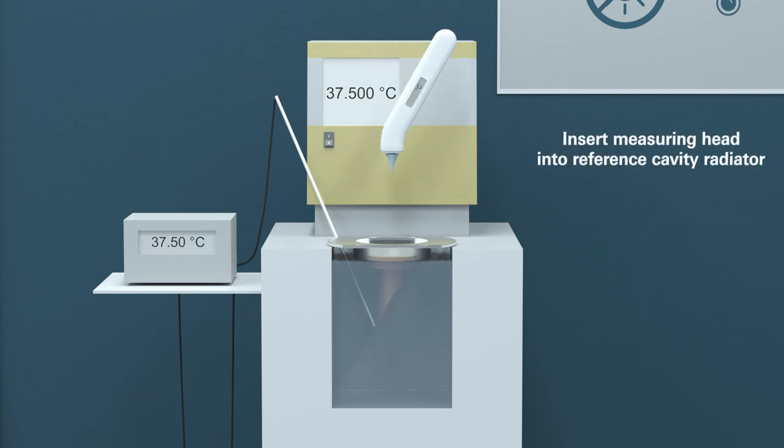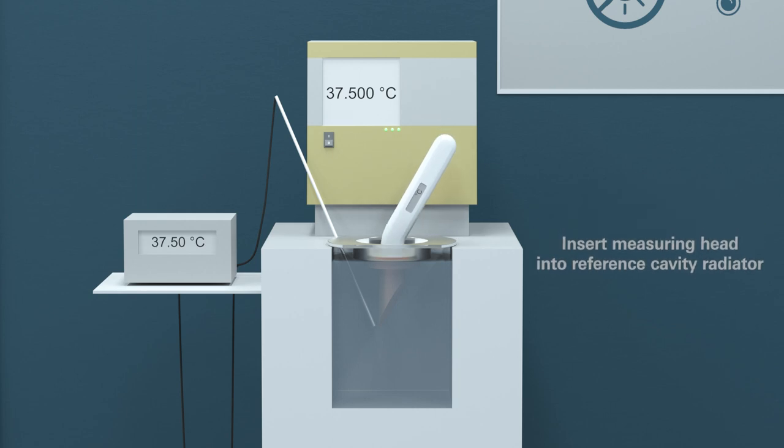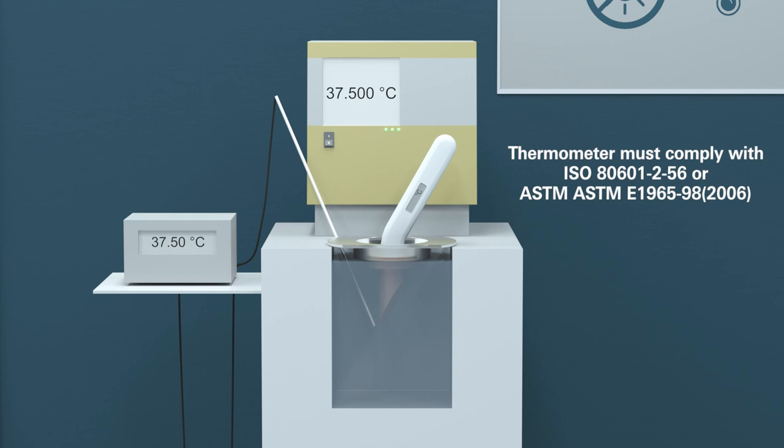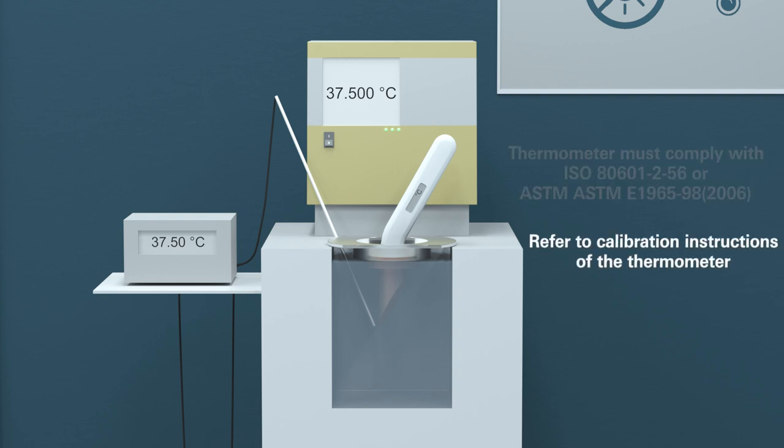Insert the measuring head into the reference cavity radiator. Note that the ear thermometer must comply with the applicable standard. You should find detailed calibration instructions in the thermometer's operating manual.